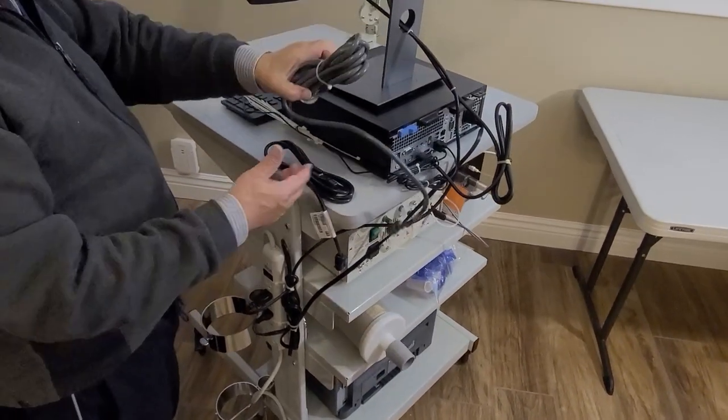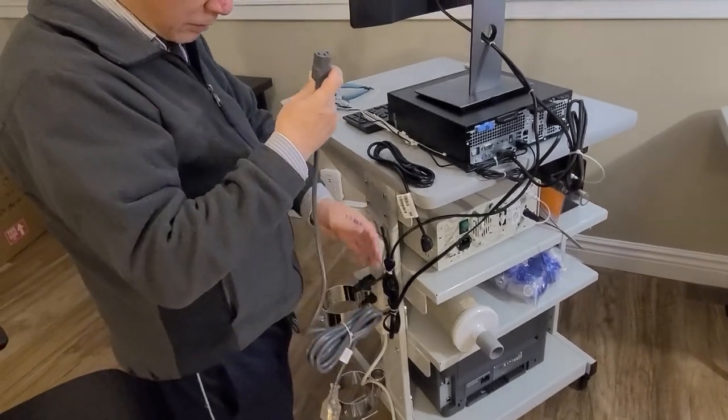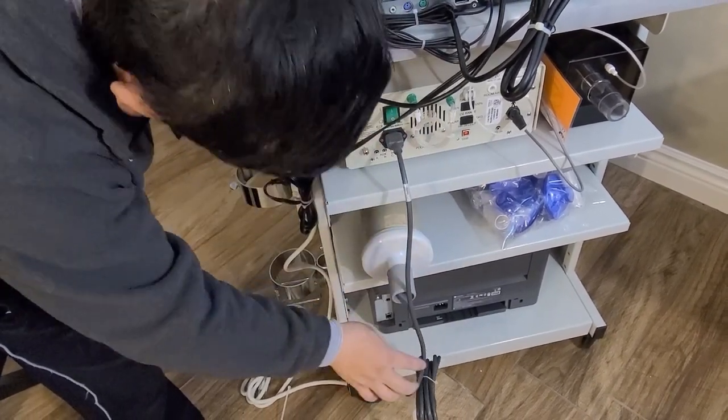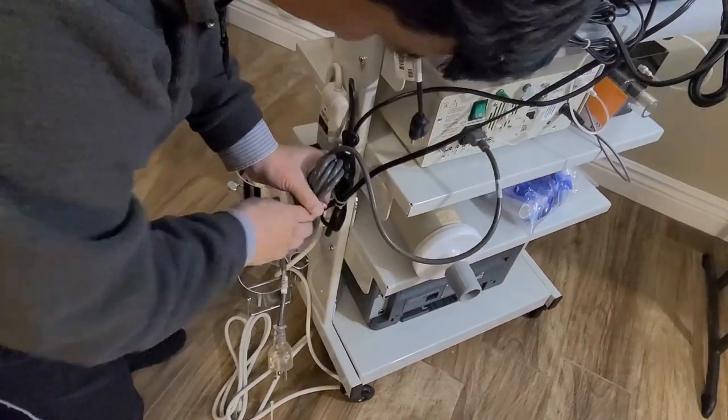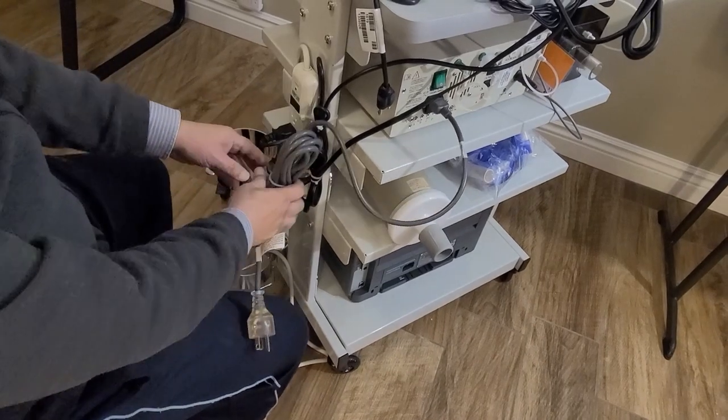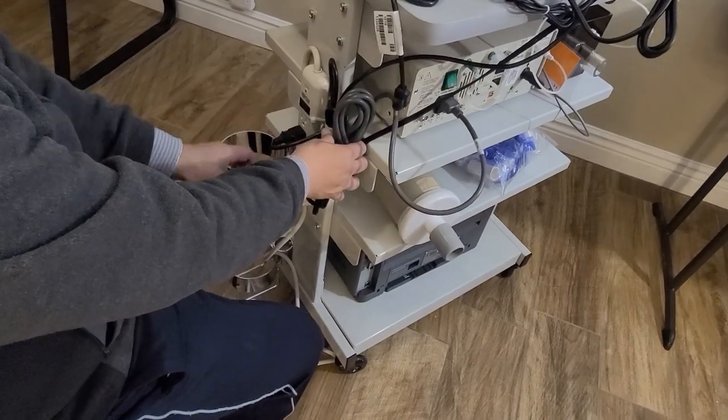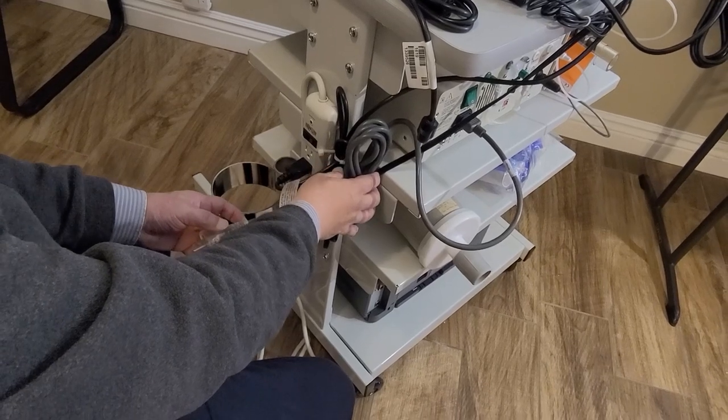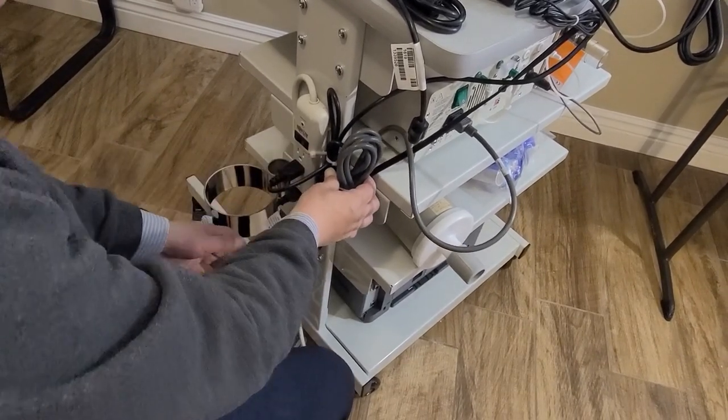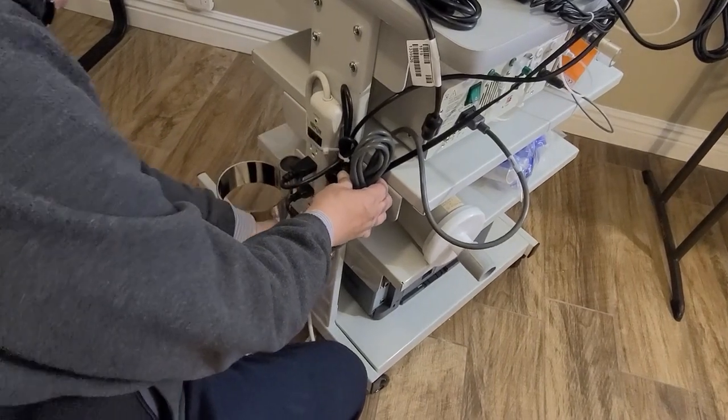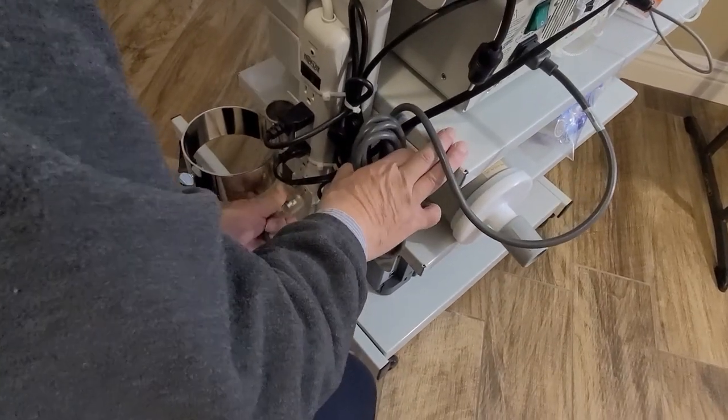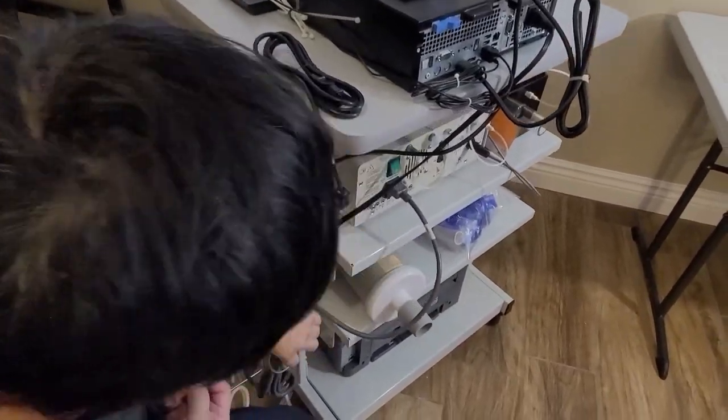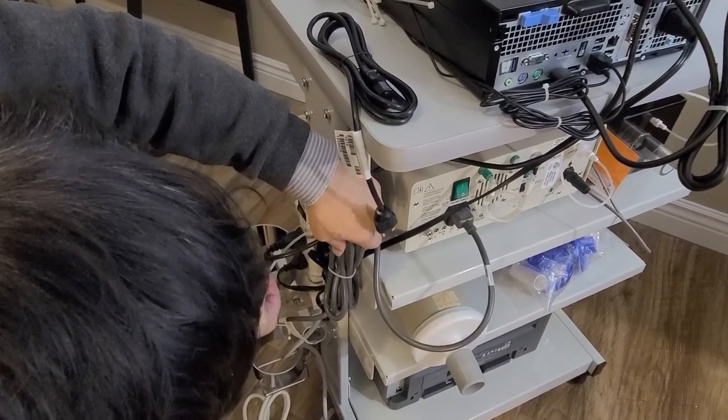Next step is the analyzer medical power cord. Again we go in, make sure it's barred, turn the power on. Because we have limited space, I take it on top of the power cord for the monitor, and this one is very big connector, so I have to push it to the bottom of this power strip to connect.